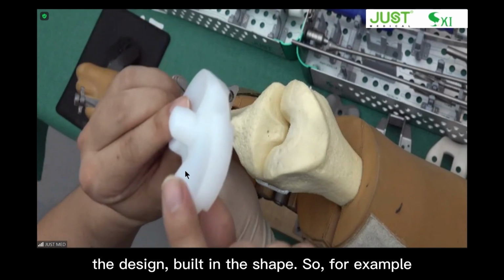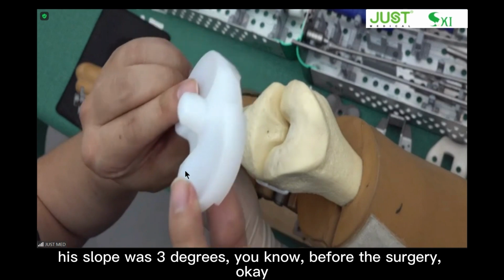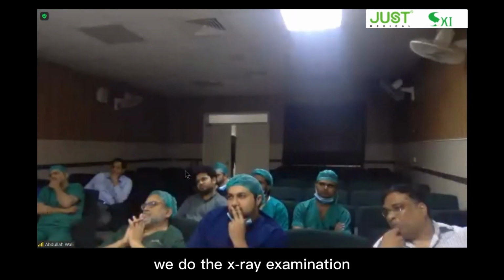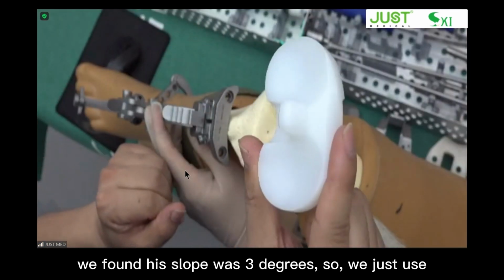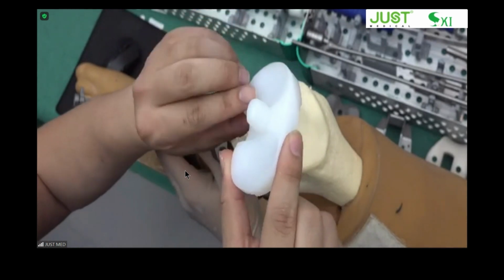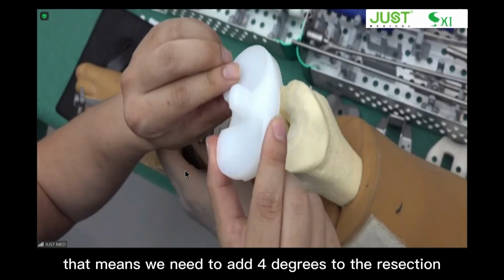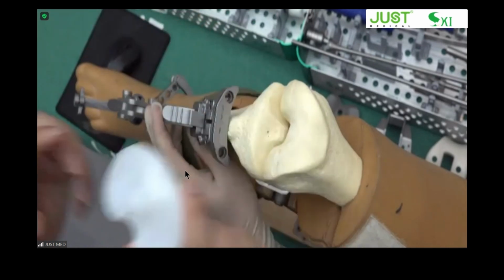So for example, if we determined that this patient's slope was 3 degrees before the surgery, we do the X-ray examination, we found his slope was 3 degrees. So we just use our tibial bearing. But if you find, for example, his slope is 7 degrees, that means we need to add 4 degrees to the resection.